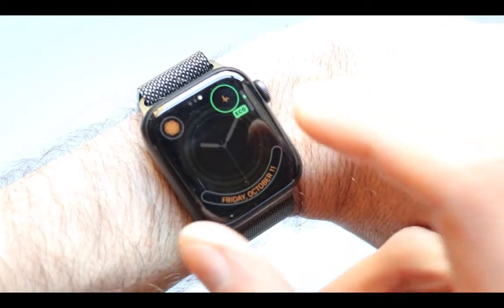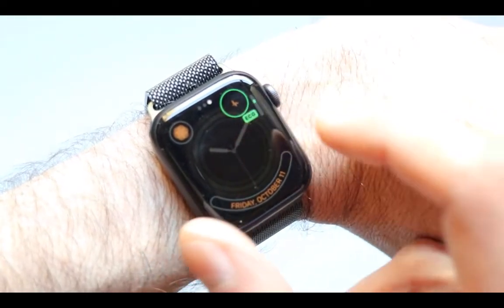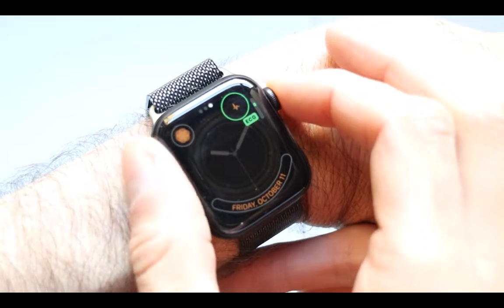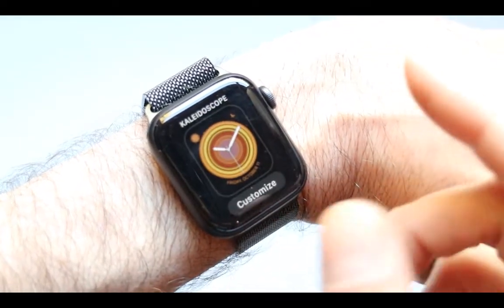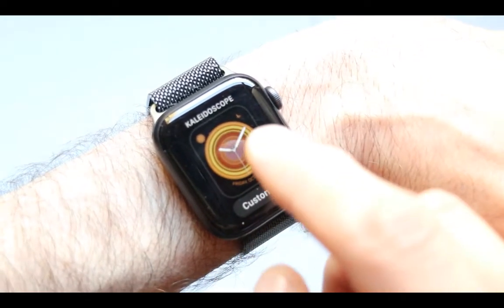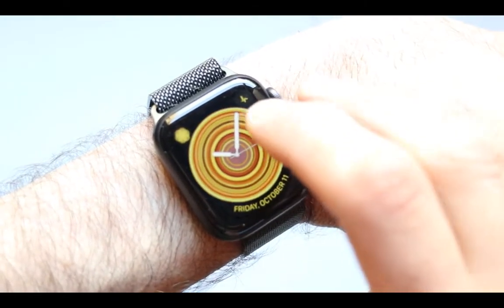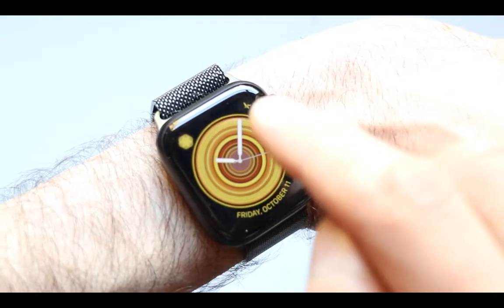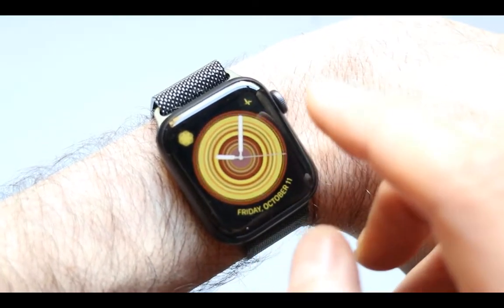There we go — this is the one we want, the one that says EKG. Press on it once again, then press on the icon, and now we have the EKG app right here in the complications.